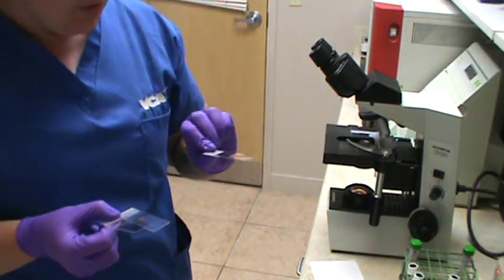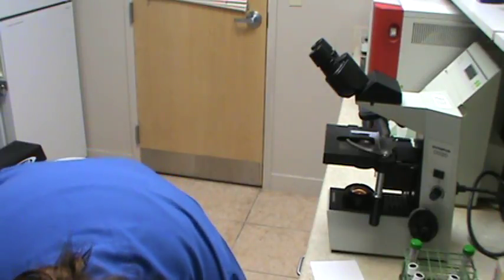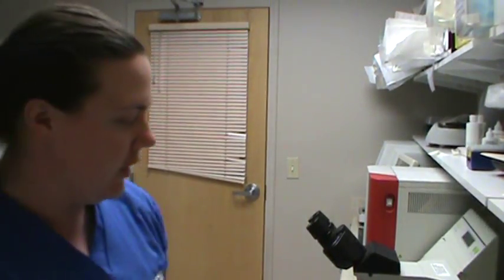So I'm going to go ahead, throw these into my sharps. Okay, and so I'm just going to take all the notes that I just wrote, just saying that I don't see any agglutination at all. I'm going to turn the light off of my microscope. Just going to go over to the record and type that up into the patient's record, just saying that we do have a potential match or a good cross match, that we can potentially have Sophie be a blood donor for our friend Sky.